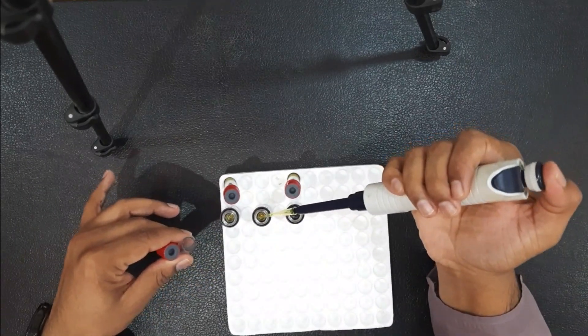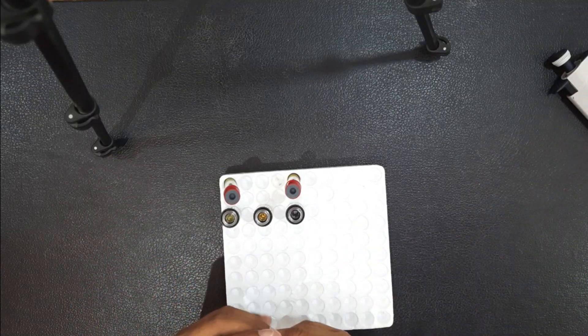You'll notice that I always switch out the tips for each sample just to be safe from contamination.